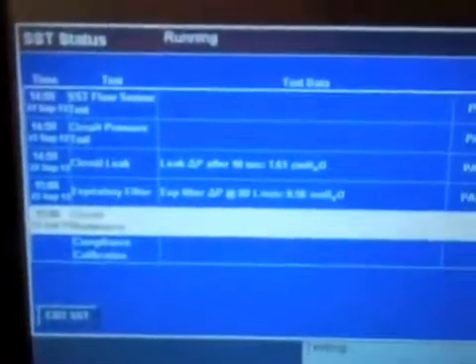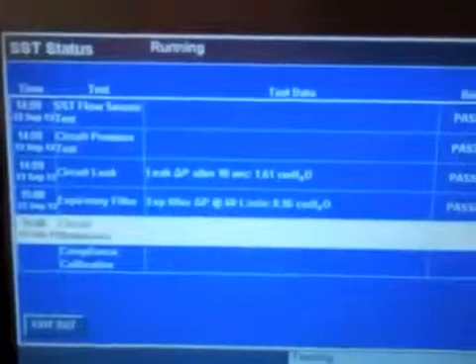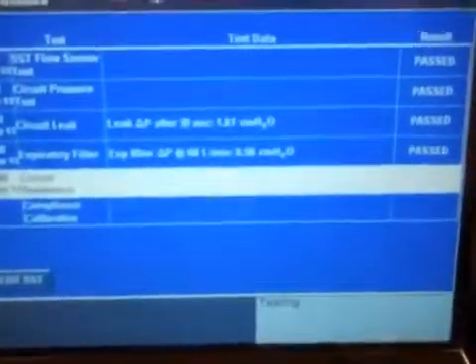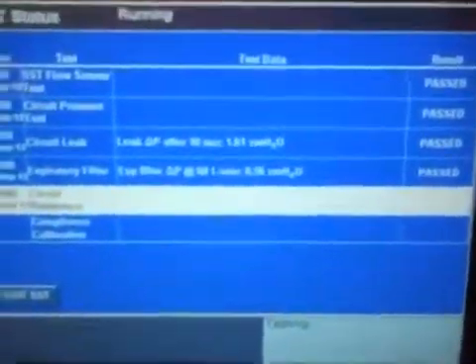And now we've moved on to our circuit resistance. This is what I want to see in all my columns that I've passed.